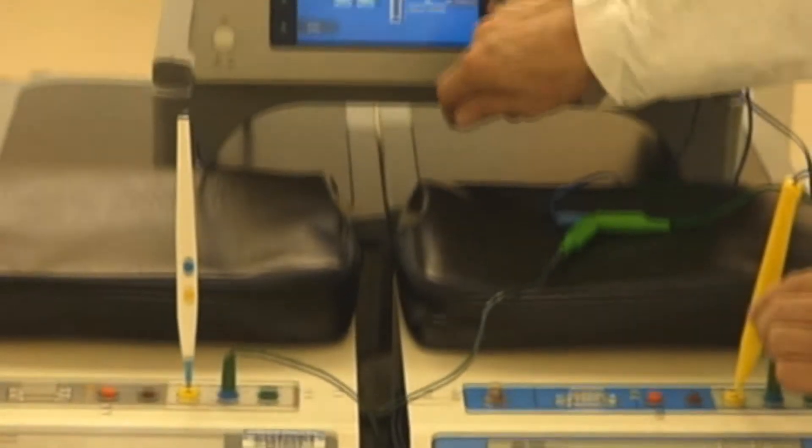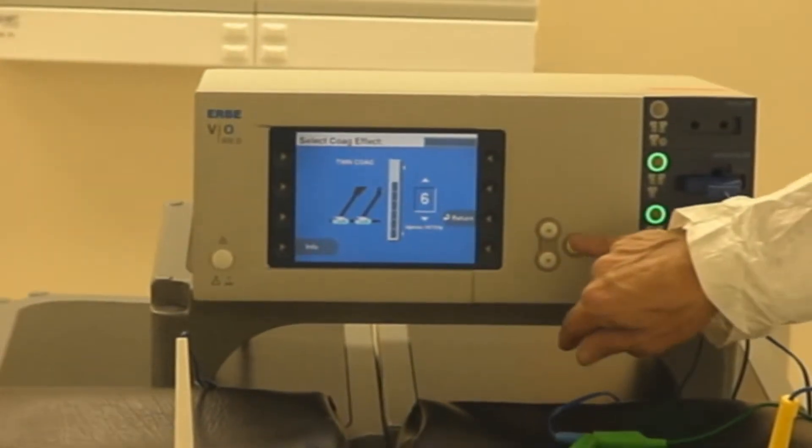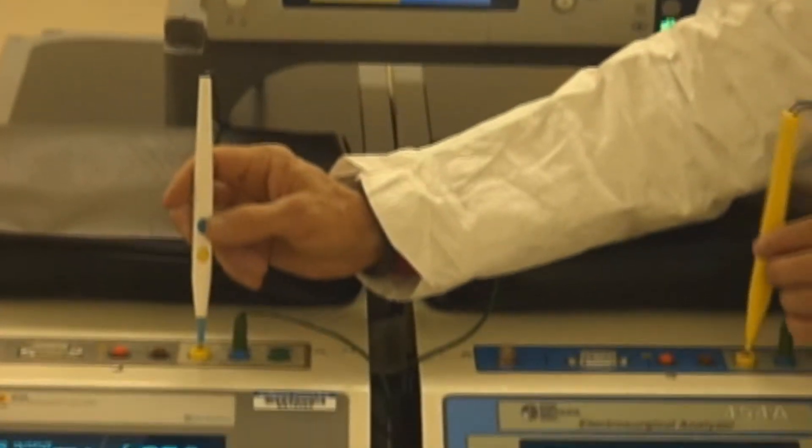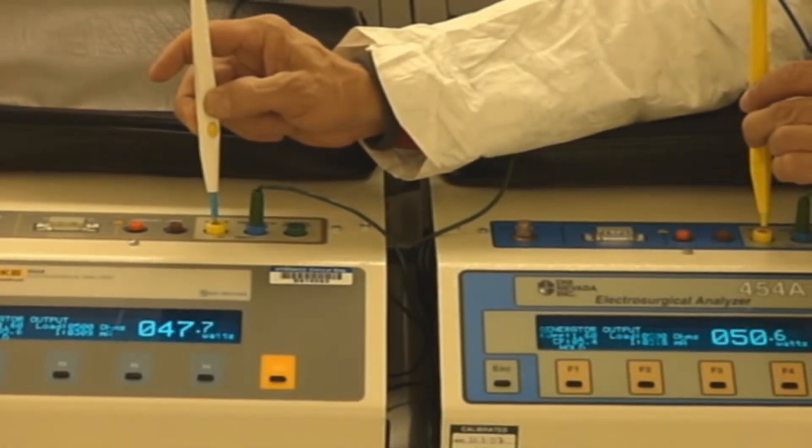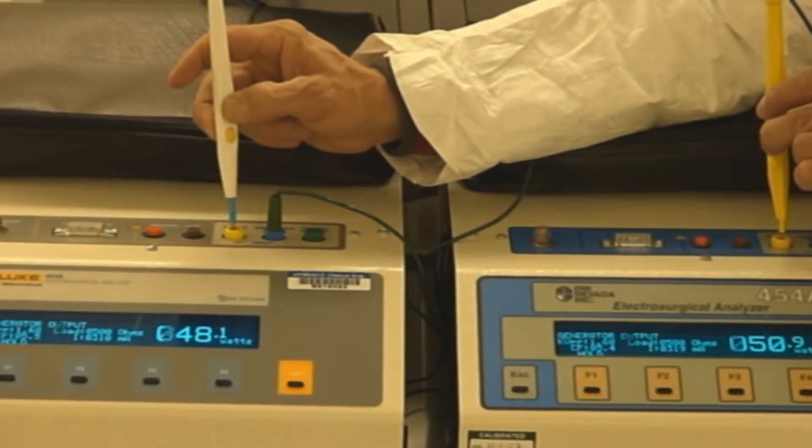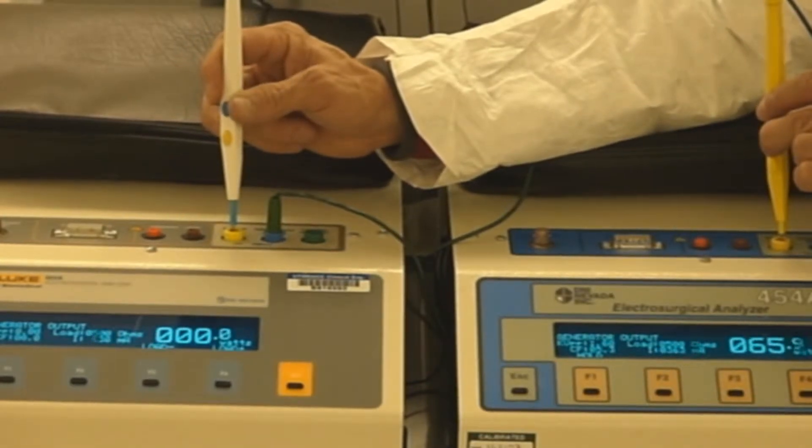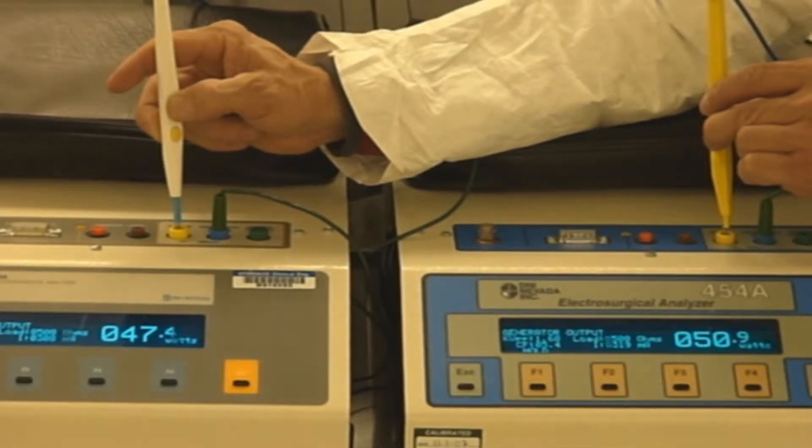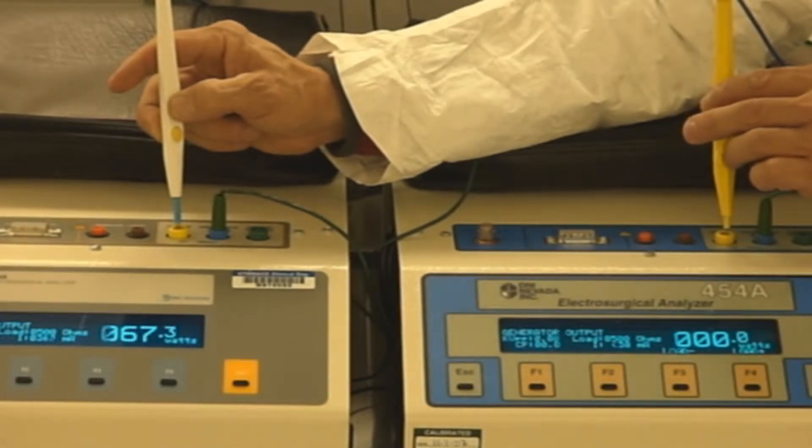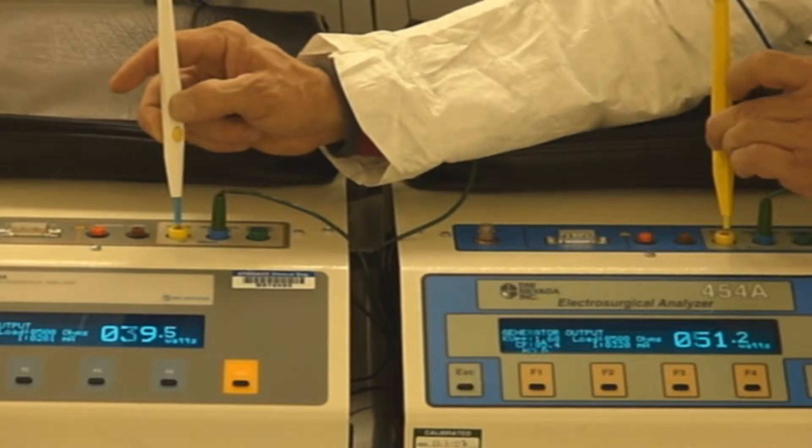We're going to go ahead and take a look now at effect six. Same load values, 500 still. Simultaneous activation. There's the split. Surgeon one drops out, there's the shift. Surgeon one comes back in, there's the split. Surgeon two drops out, there's the shift. Surgeon two comes back in, and there we have the split.